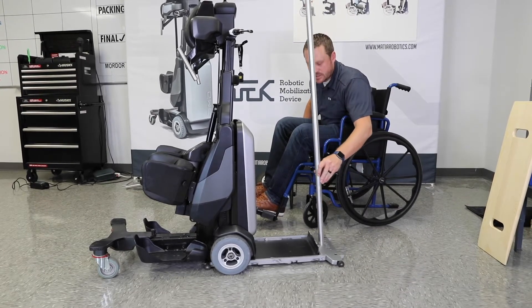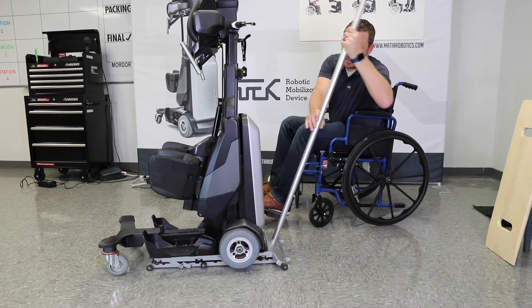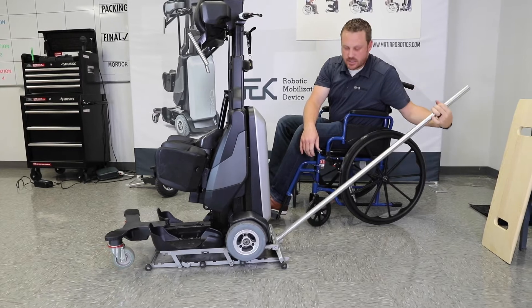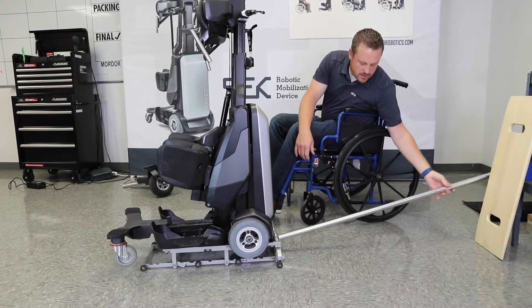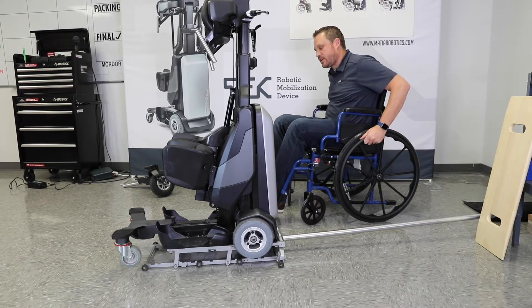The first thing I'm going to do is slide the lift underneath it, and then I'm just going to pull down on this bar — it's long so that you have leverage to do it — and that's going to lift the TechRMD up high enough that I can do all the changes.